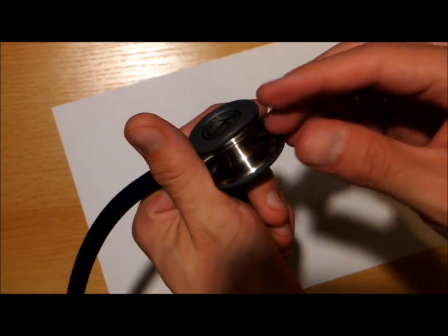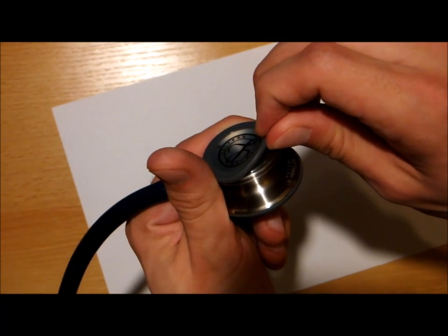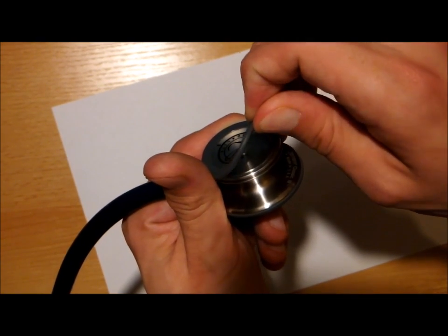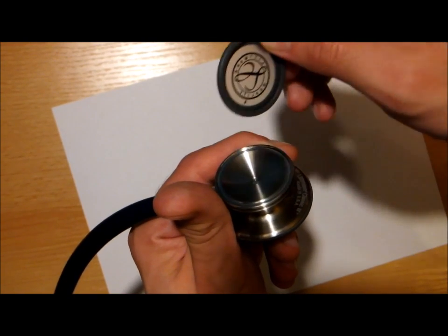And here we are. If you're able to just peel off a part of it, then the rest will go off easily, like this.